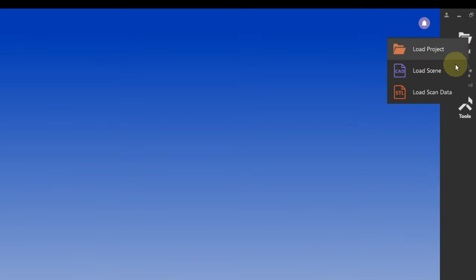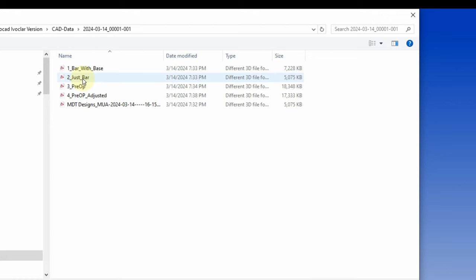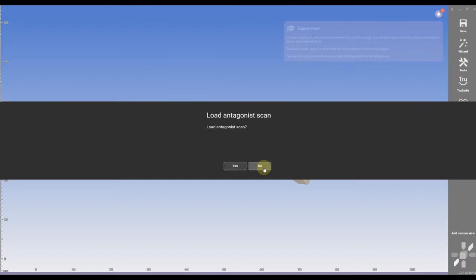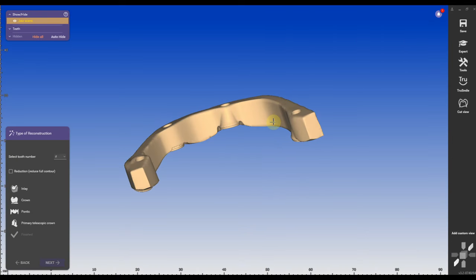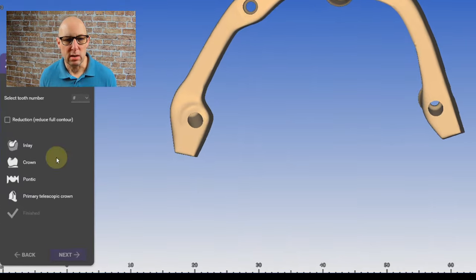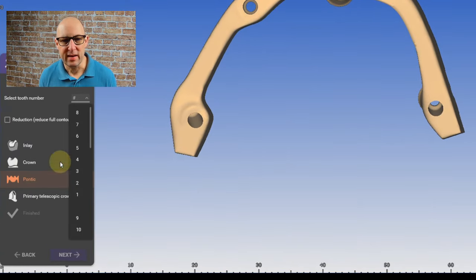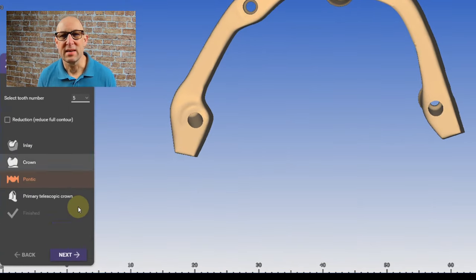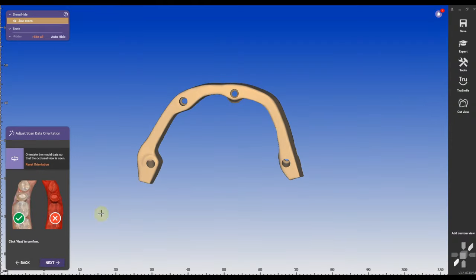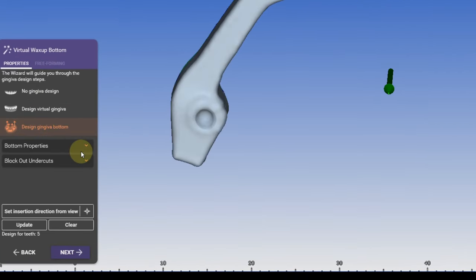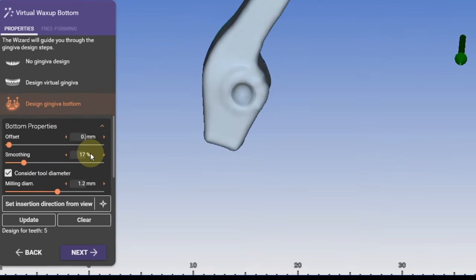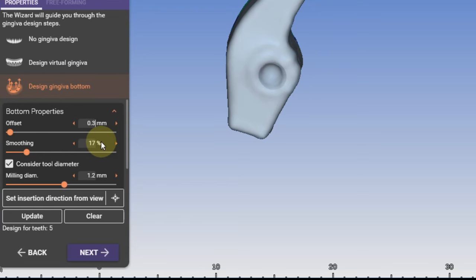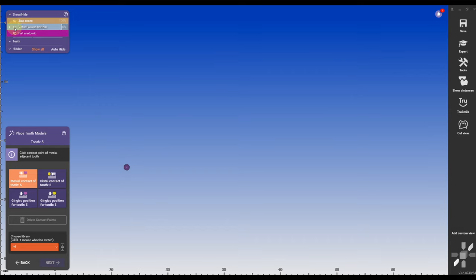Right click on the new CAD module, open a new CAD model, open just the bar and assign it a pontic site. Just click on contact, I'm just going to click on pontic, any number works. Click next, click finished, put it in the same orient system, design the gingiva. And here you can set the properties to the cement gap that you want to have between the denture, the zirconia and the bar. I'm going to put 0.3 here. You can put something else, depends on you.